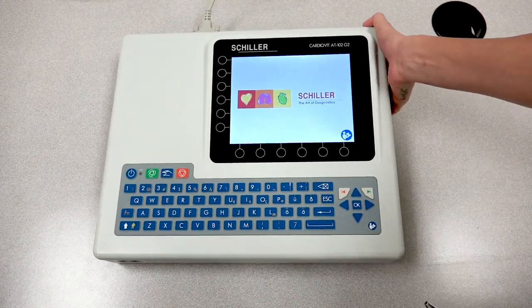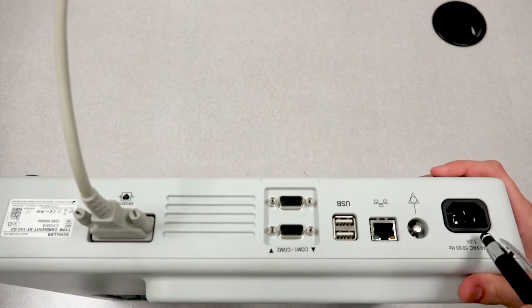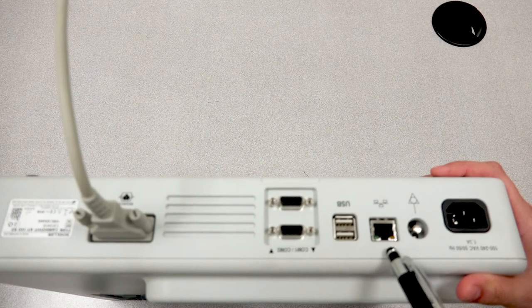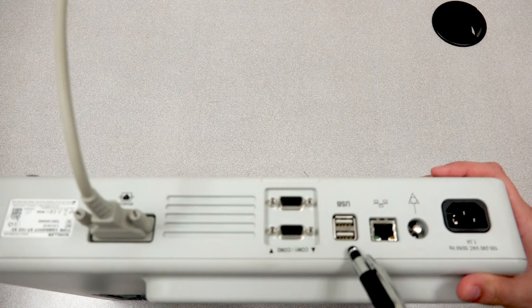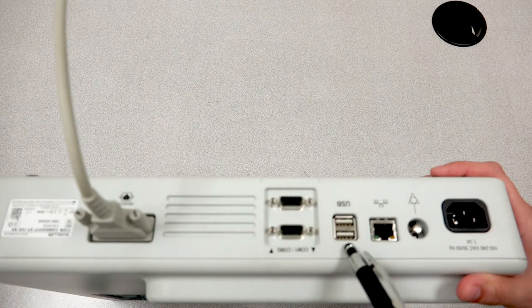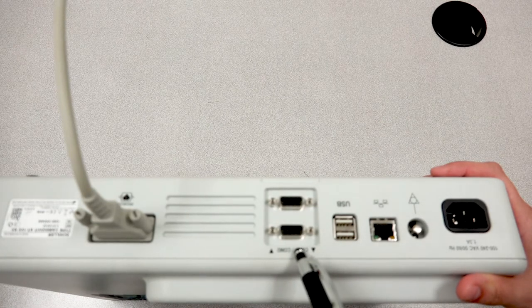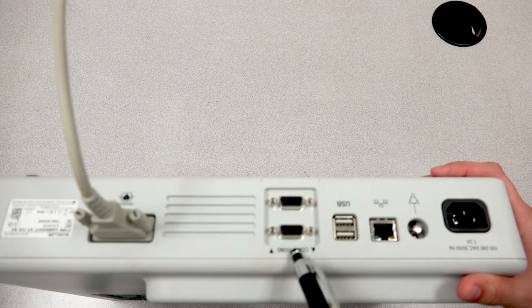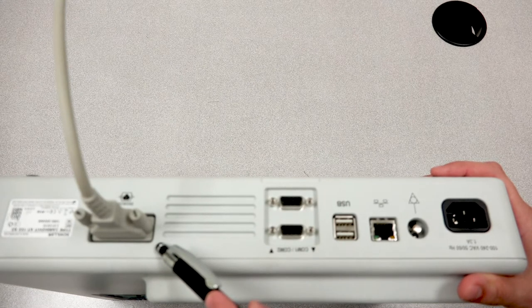Toward the back of the unit you'll find many different ports, beginning with the power cord port, your grounding port, the ethernet cable port, and two USB ports which are used to perform software updates or to export ECG reports into PDF formats. You will also find two RS-232 ports which are for the communication cables to the treadmill or the bike, and last you will find your ECG patient cable port.